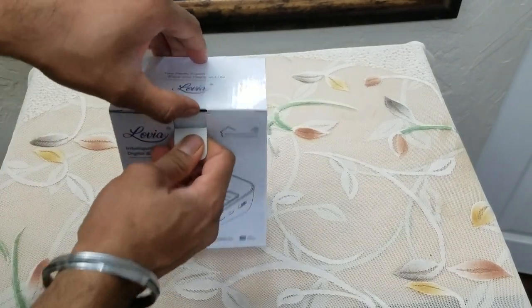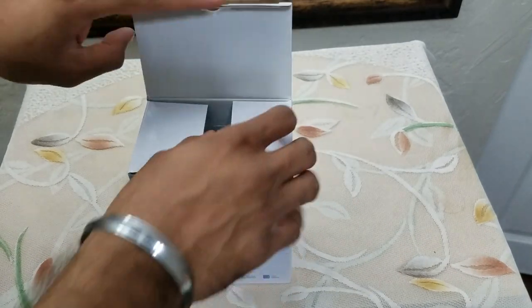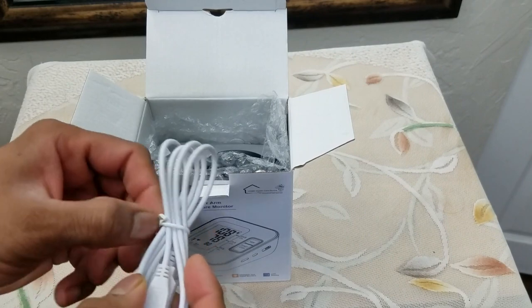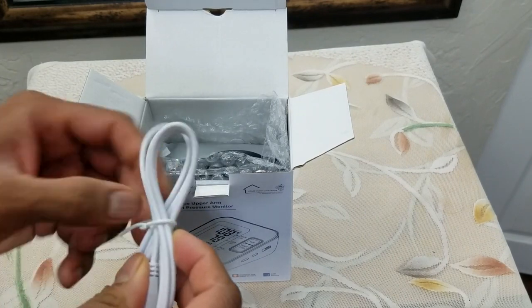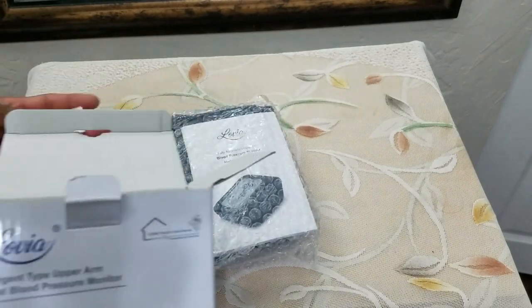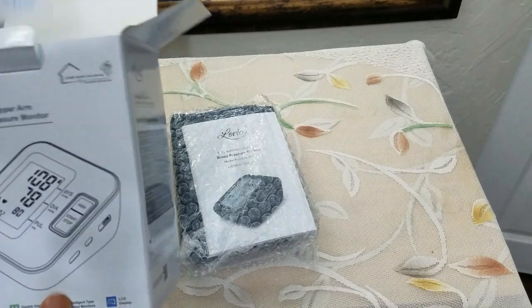Let's open it up and see what's included. It's pretty snugly fit. We have a USB cable, so that tells me it connects by USB. It is bubble wrapped, so it is pretty well packaged. There's a QC pass sticker, so it is quality checked.